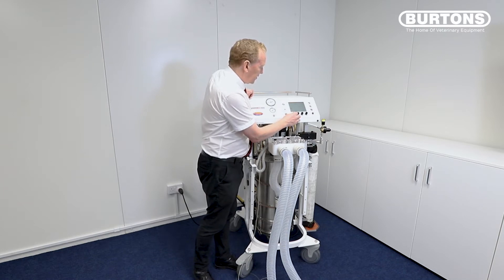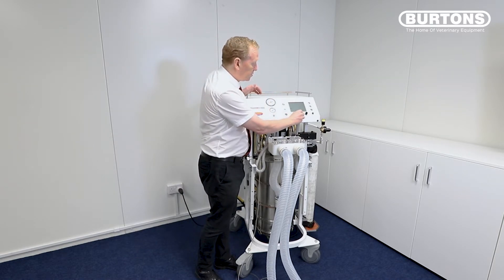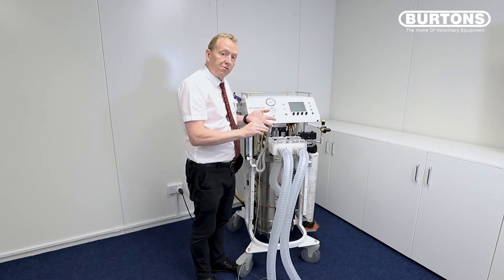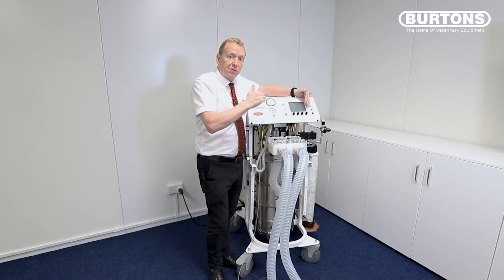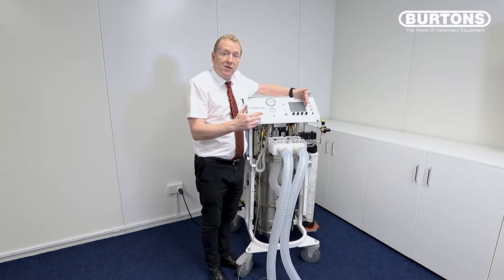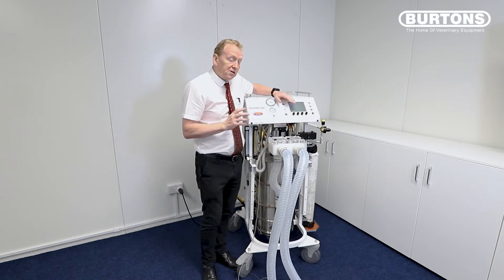I'm going to set the tidal volume to five. I turn this to five and then commit it by pressing the button. My inspiratory time I'm going to set to two seconds for my horse — set that — and my respiratory rate I'm going to drop from ten to eight. So now I've got my machine set for tidal volume, respiratory rate, and inspiratory time. I've also got a maximum working pressure limit here — if pressure reaches this value it will stop the inspiratory phase and open the release valve. I tend to set this about 10 centimeters above my predicted peak inspiratory pressure. My PIP is probably going to be 20 to 25, so I'm going to set this at 35.